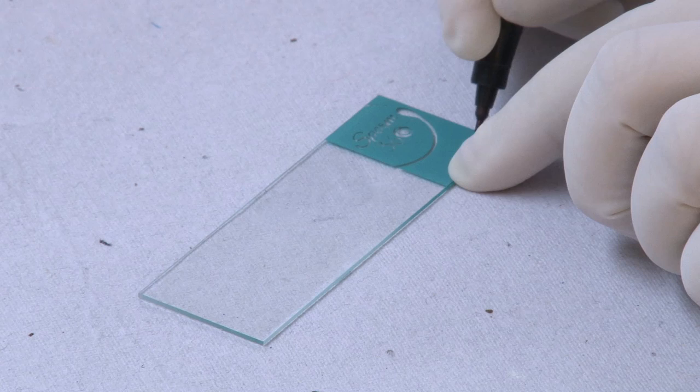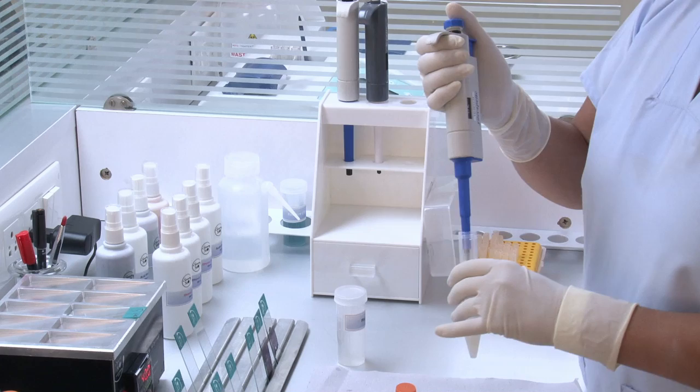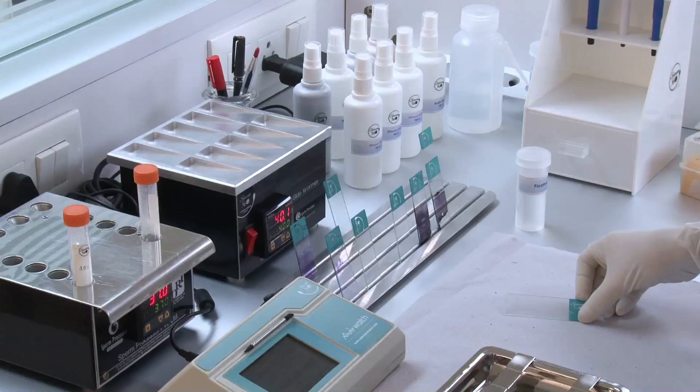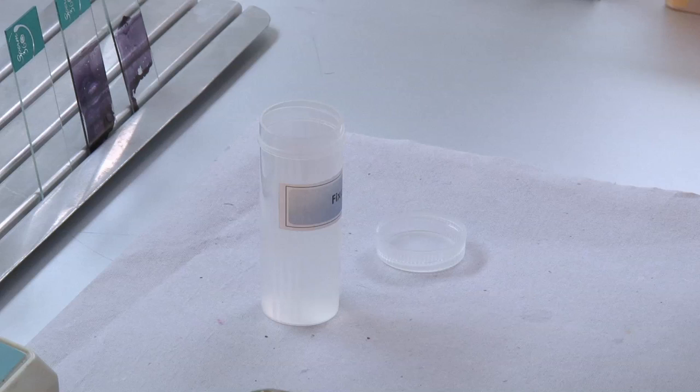Bring all the reagents to room temperature. Label the glass slide with ID. Place the semen on the glass slide and prepare a smear. Keep the slide on the slide warmer to dry.